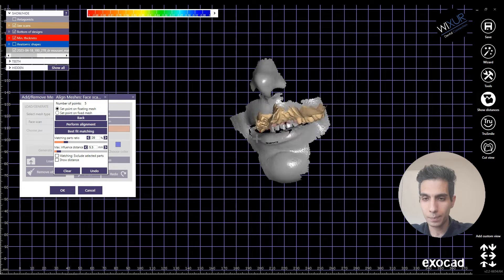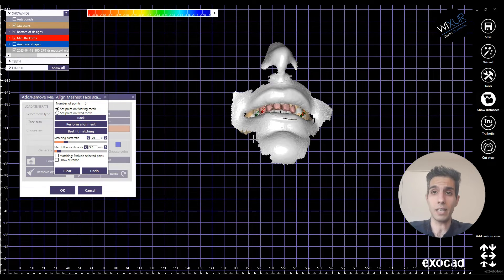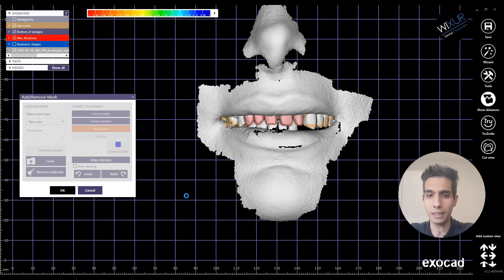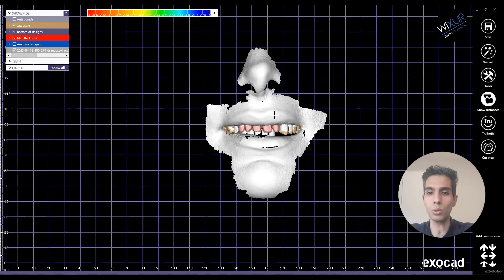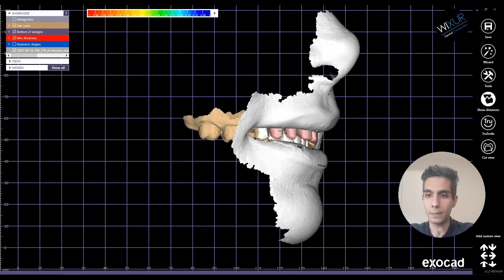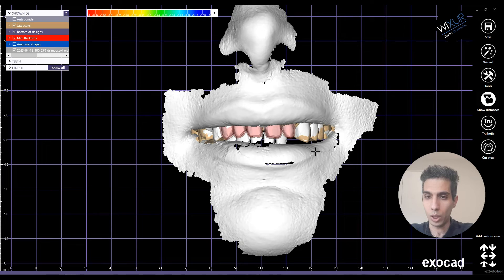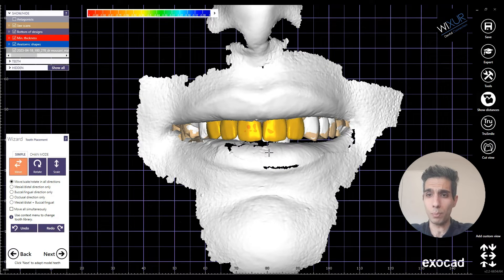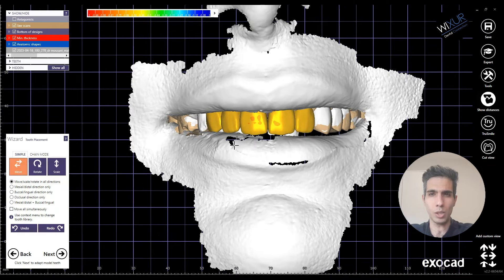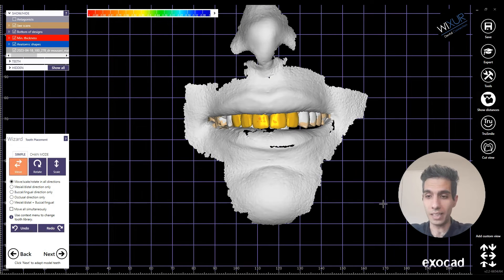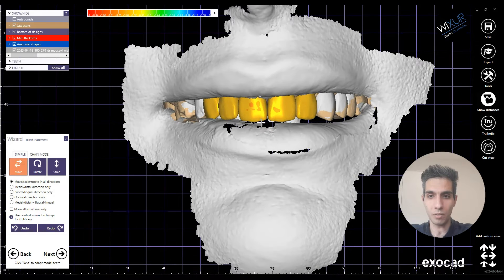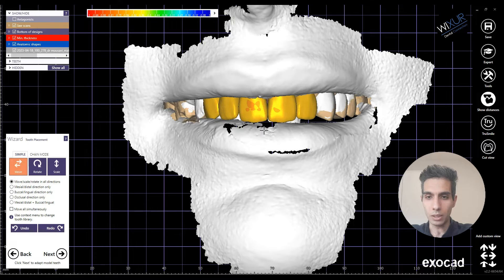Okay, prepare for alignment. What I see is a good match here, thanks to the dentist who gave me a good face scan — it has a lot of details. So I can easily match these two without errors and work with it easily. It's really important to have a good scan; otherwise it's almost impossible to match these two together, and it's useless — and sometimes it leads to mistakes if it's not matched correctly.